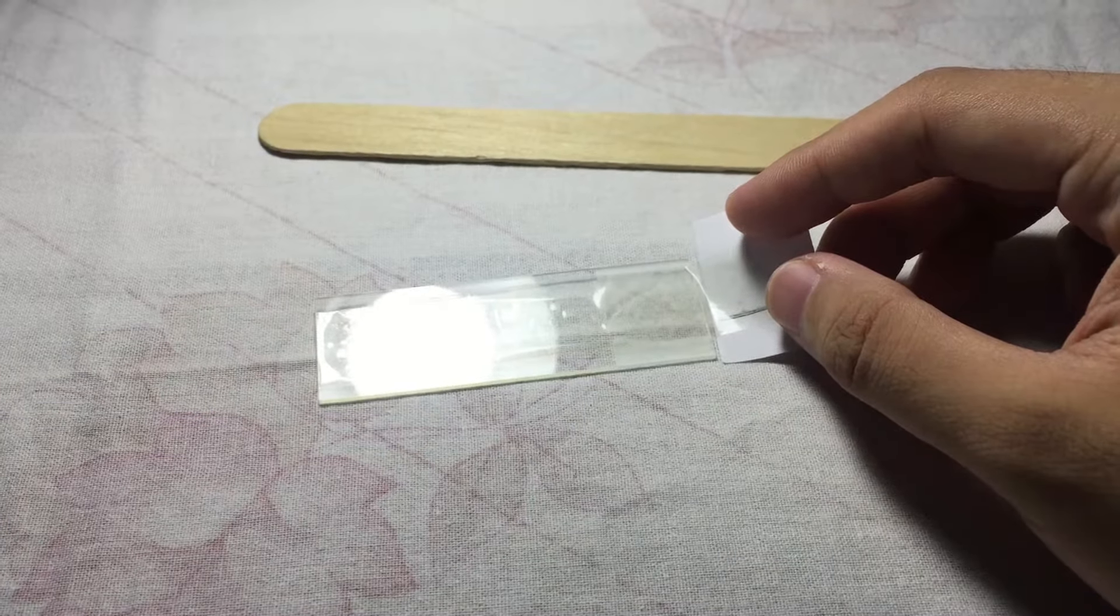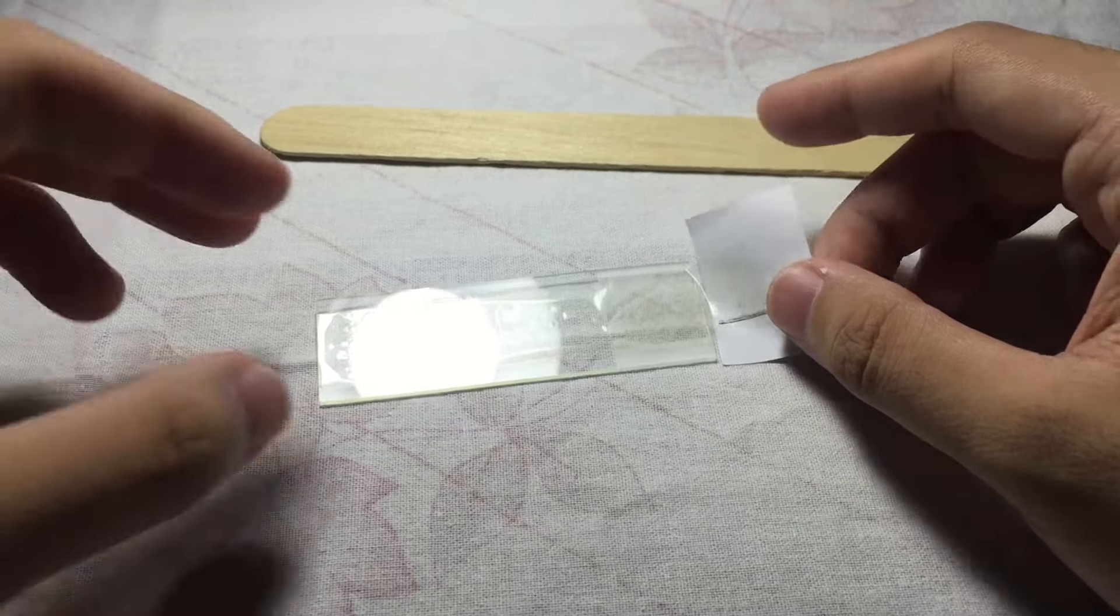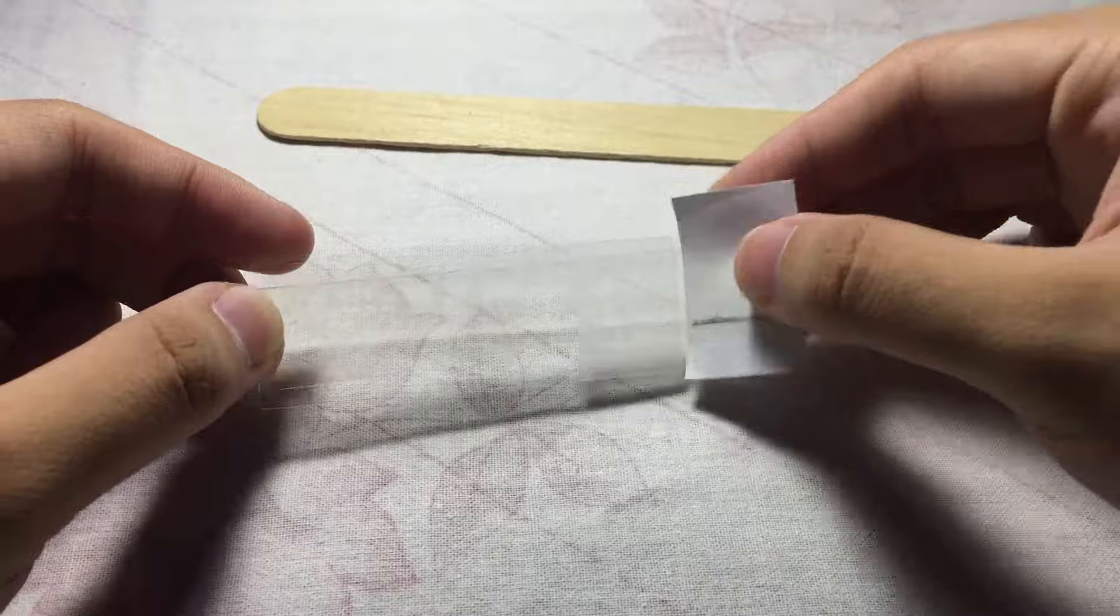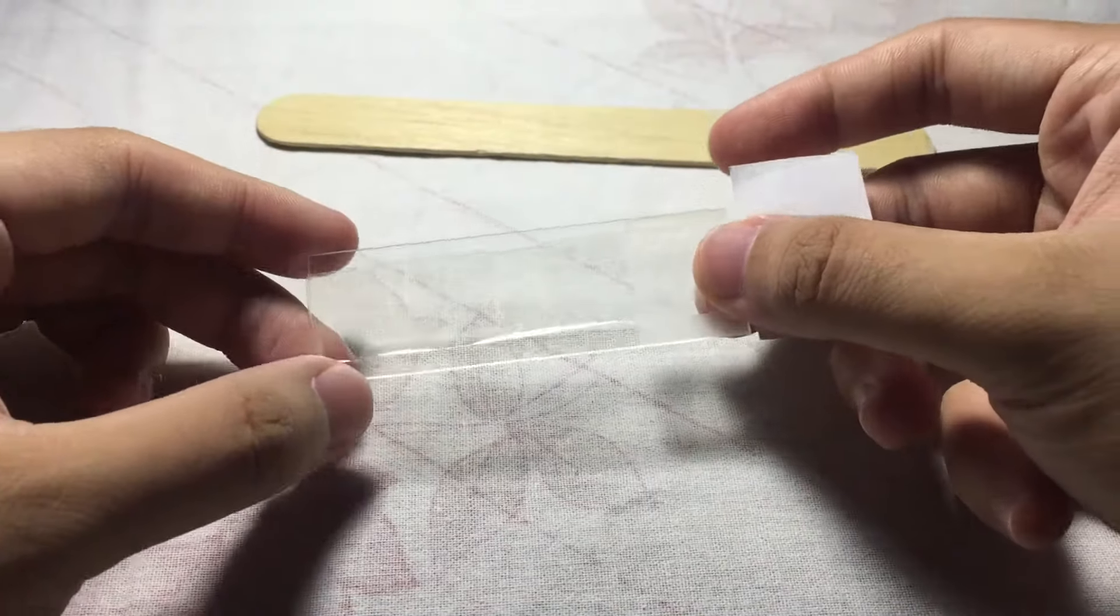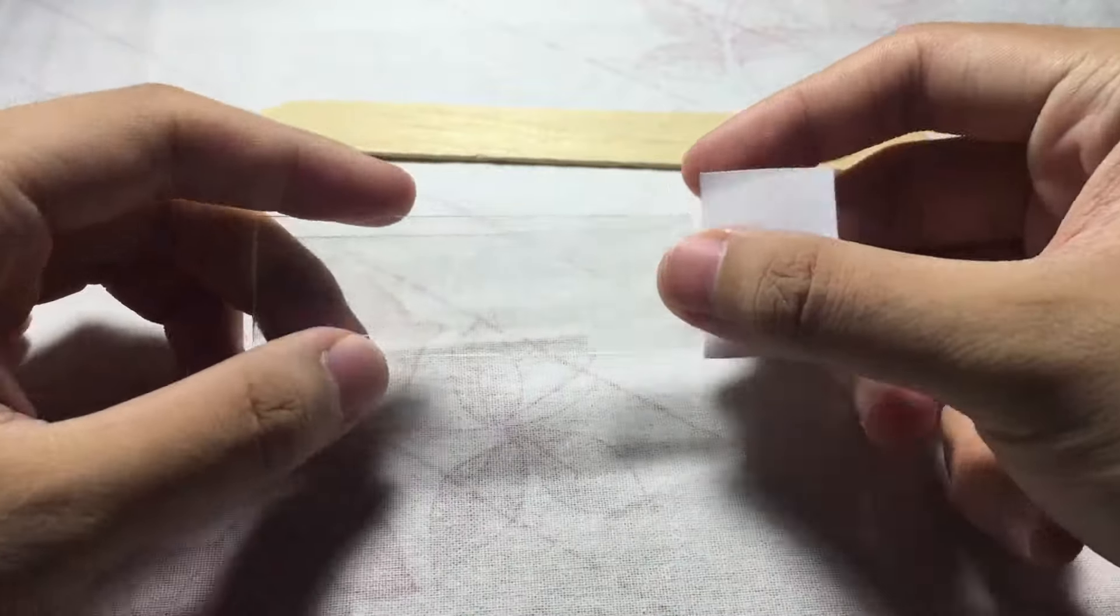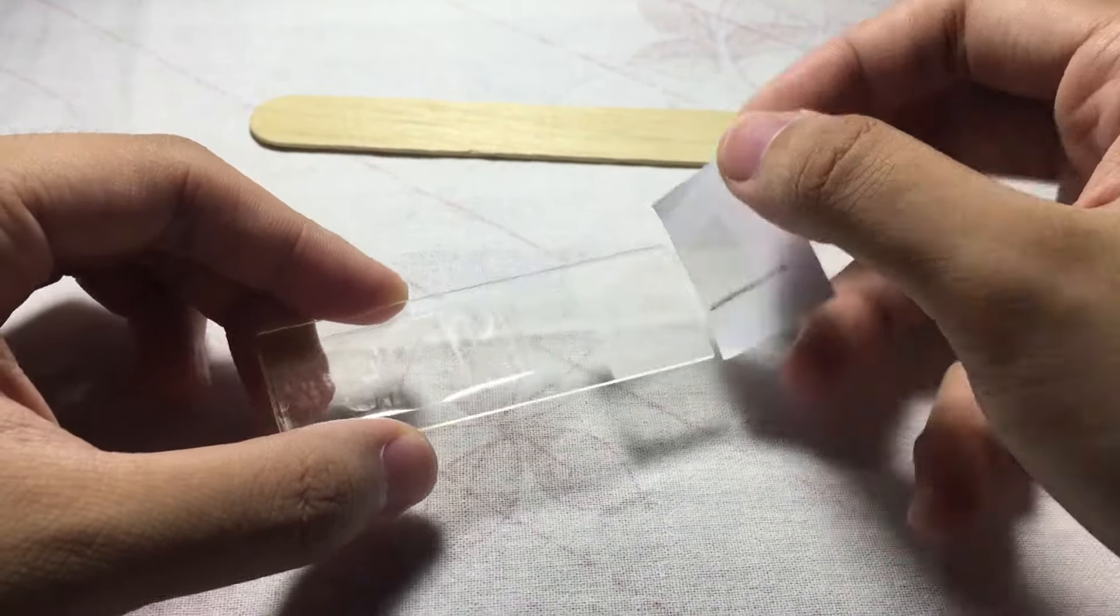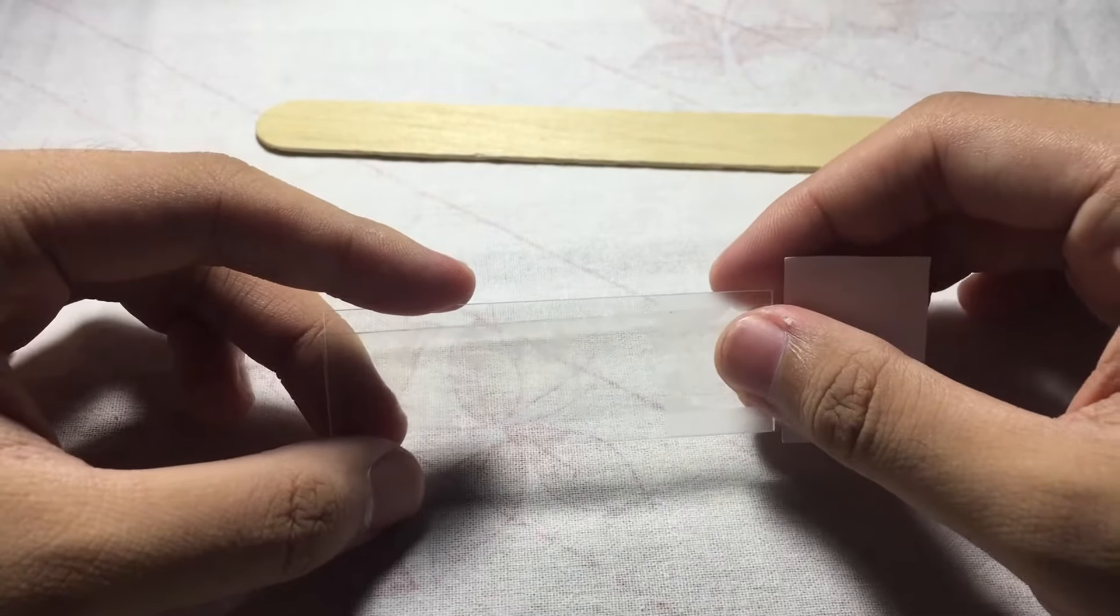Our first step - this is the front and this is the back. Before collection, regarding timing, you can collect the sample late at night, around 10 to 11 PM after the patient has been asleep for several hours, or early morning upon waking up.